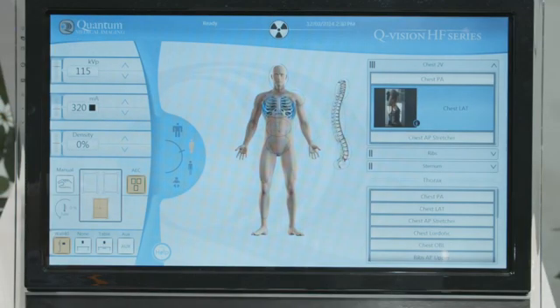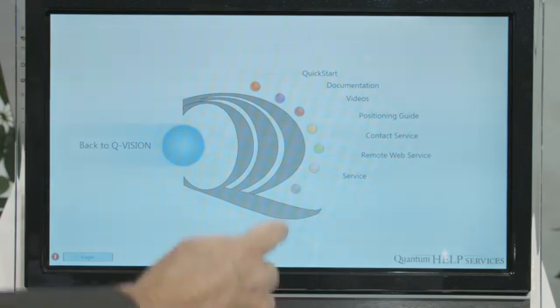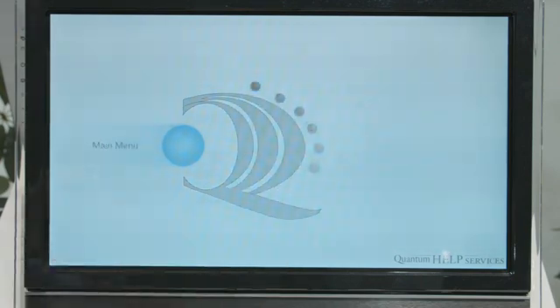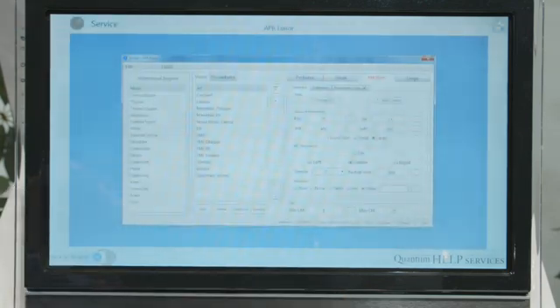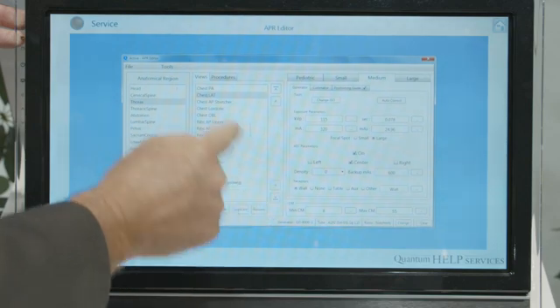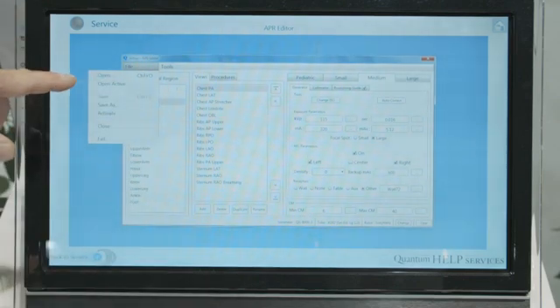As an example of configuring exams in the QVision generator, we go to the help screen and enter the service. I enter the password, and it brings me to the generator service for installing the generator, as well as from an application standpoint, the APR editor. It opens the APR editor where I can select thorax, chest PA or chest lateral, and this is where I configure for pediatric small, medium, and large, the generator technique, AEC on and off, and AEC cells. From there, we save the file and then activate the file to be active in the console.